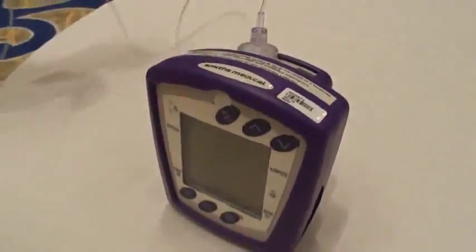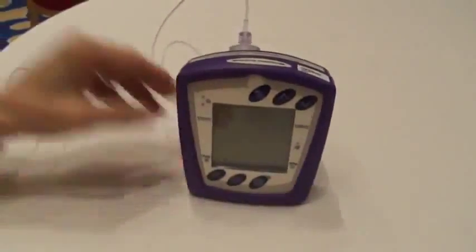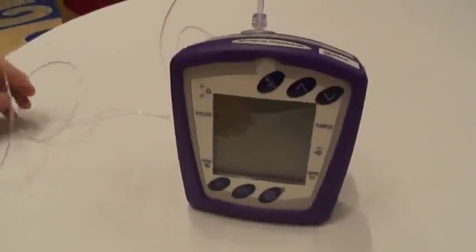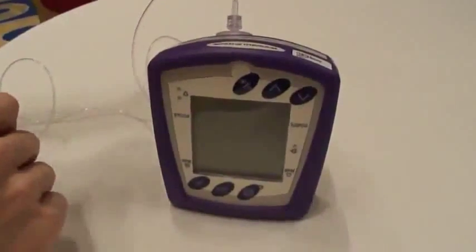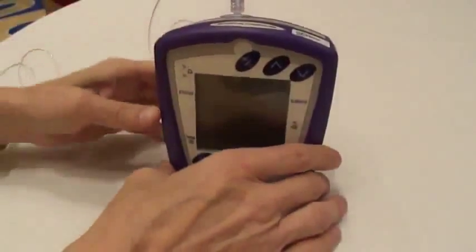Now you can use just the nasal cannula sampling line for CO2 or you can use a divided nasal cannula, which would allow you to administer oxygen and monitor the End-tidal CO2.